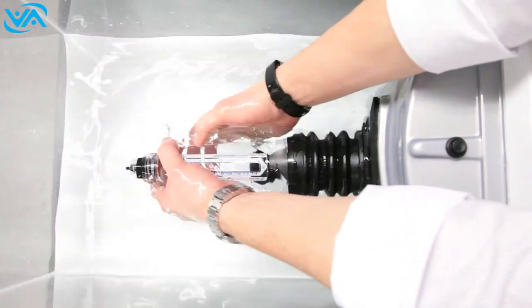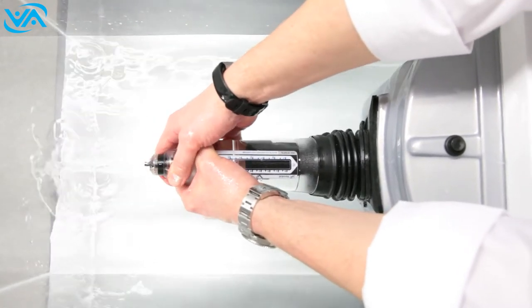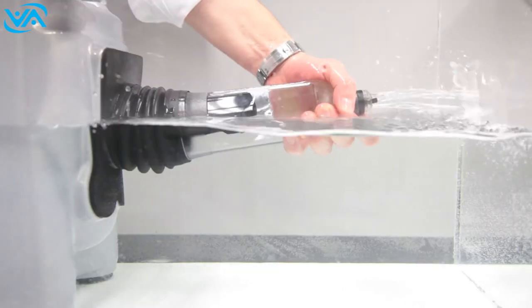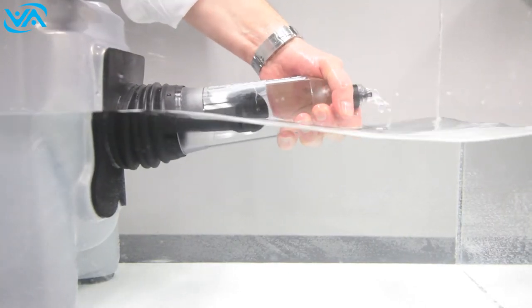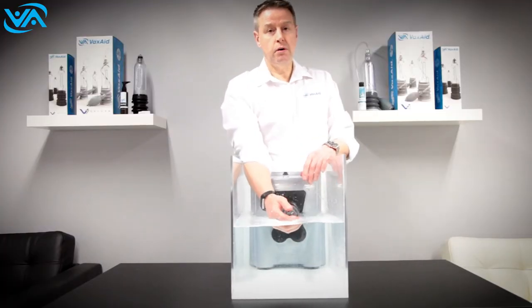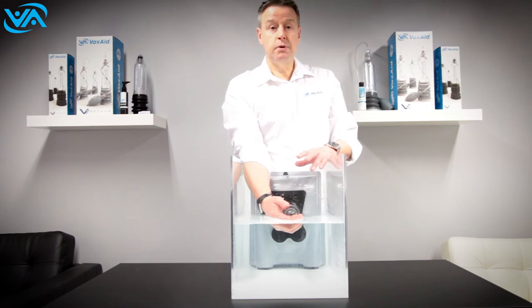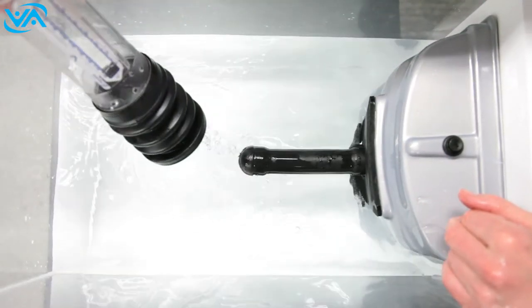Fill the pump in either the bath or the shower, then insert it over a flaccid penis and pump. The exact amount of water removed from the vessel has to be replaced by something — since the penis is inside the vessel, it's replaced by the expansion of the penis. Simply pump until you can't pump anymore; at that point you've created an erection, but it's an erection under pressure. To release the pressure, press the clear parts of the valve on top.